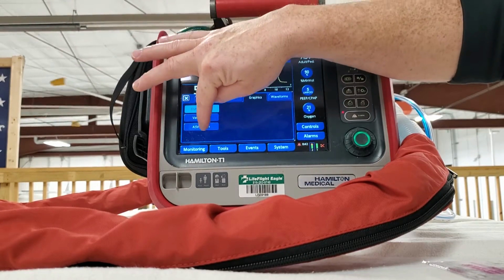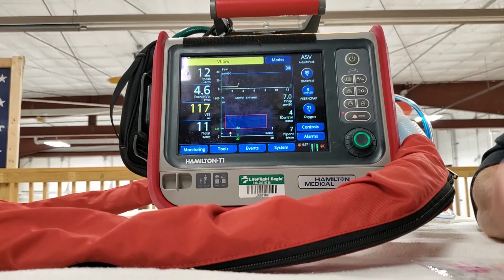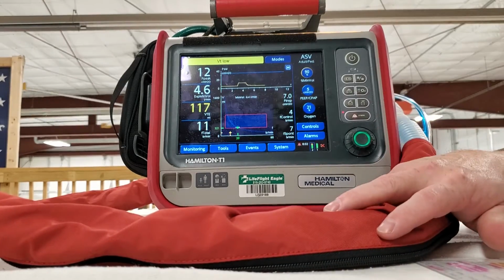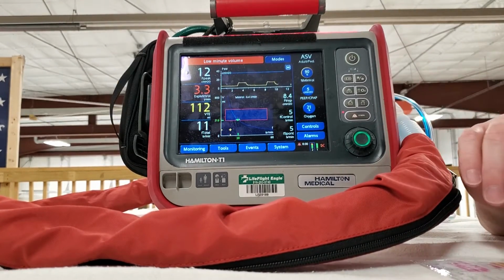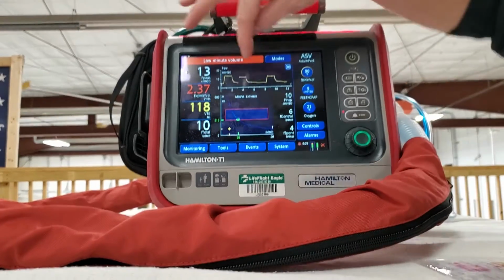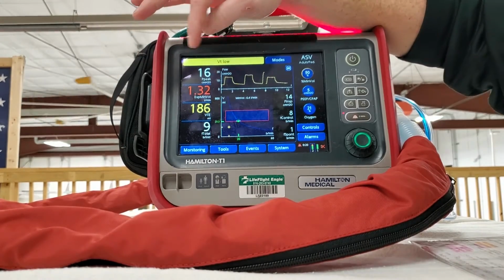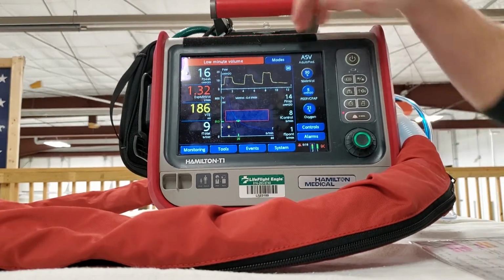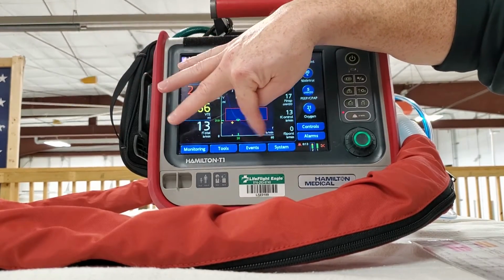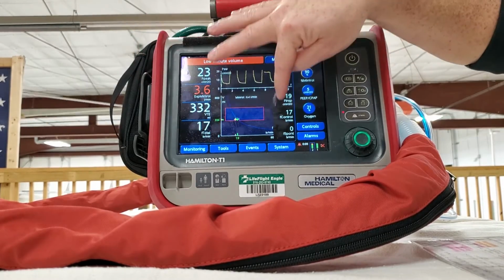Then the other thing we can do is the ASV graph. This is a cool little tool. So when the vent is sending in its information, its test breaths at the very beginning, it's doing all its calculations, determining what is best, and then it comes back and you can see this graph. This graph is telling you what is best for the patient. And so this graph itself has breaths on the x-axis and tidal volume on the y-axis, and it's going to give you this whole deal.